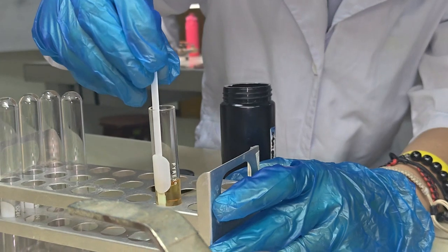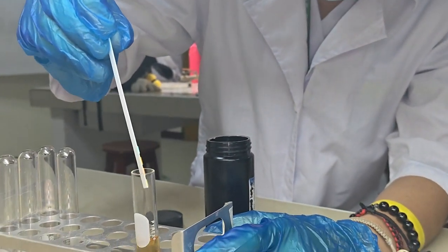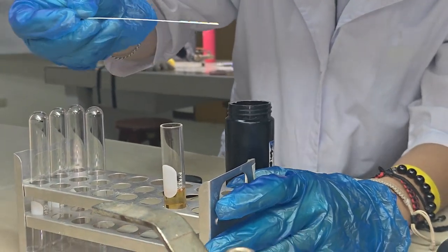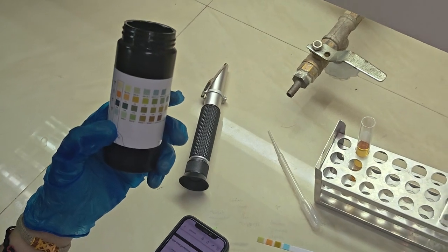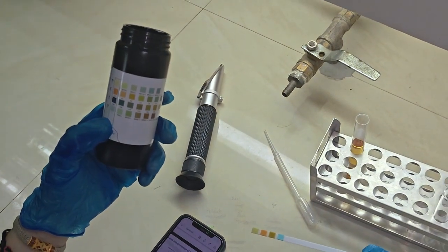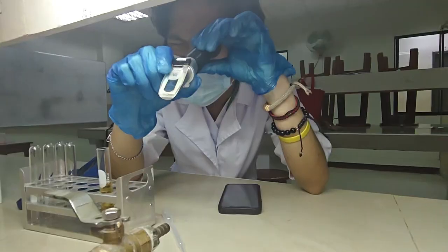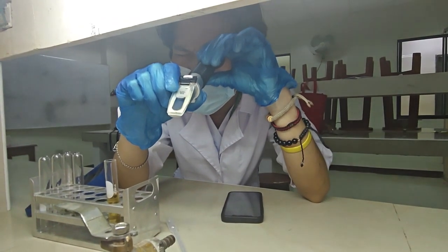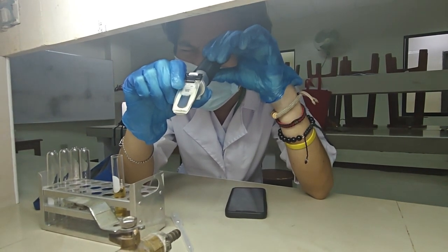The collected urine sample is clear and pale yellow in color. It is also odorless. Upon examining the results of the dipstick from the urine sample, it is indicated that the glucose level is negative, the protein level is negative, the specific gravity is at 1.025, and the pH level is at 6.